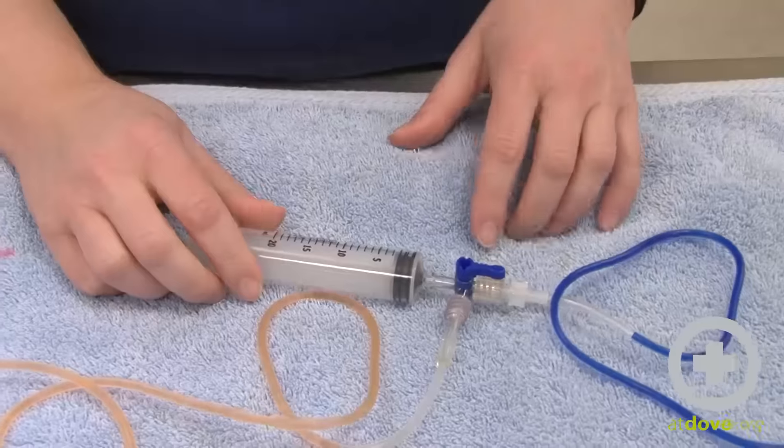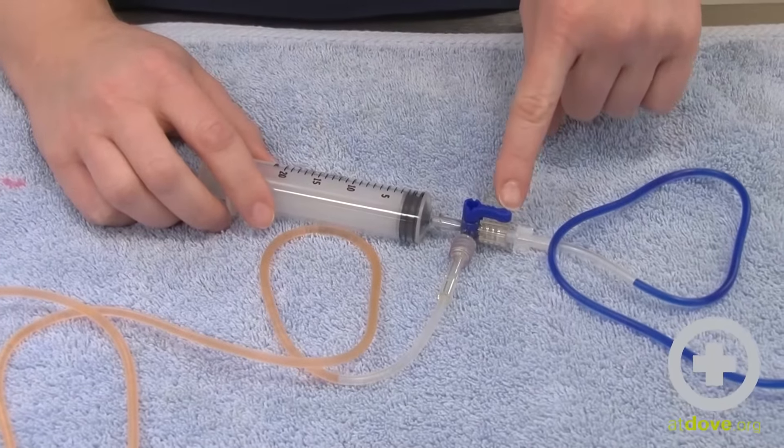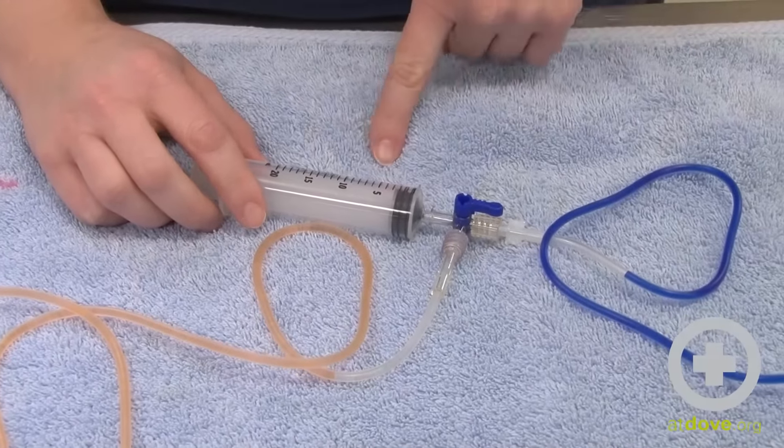So with a three-way stopcock you need to remember that where this little dial is pointing, that's closed.